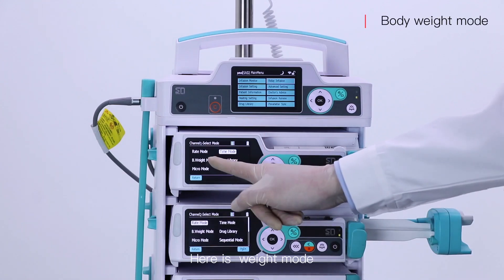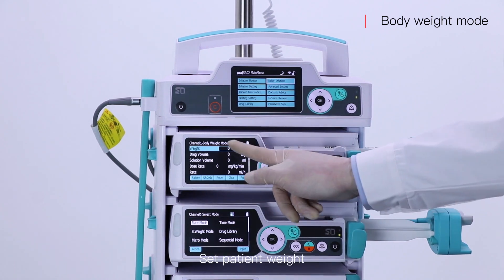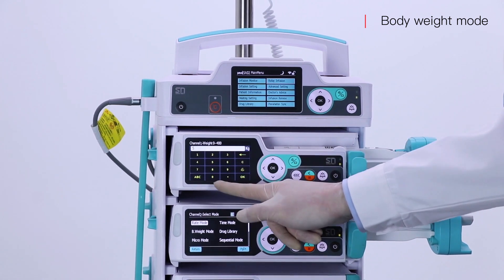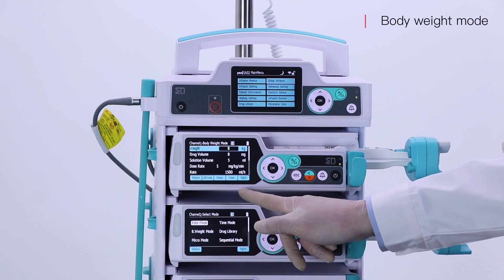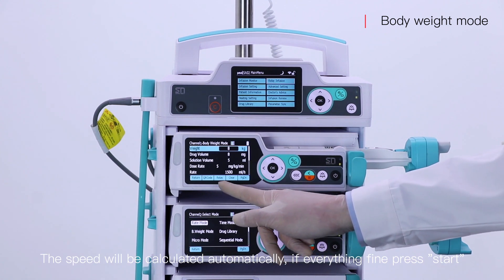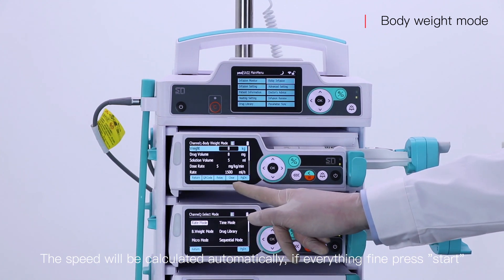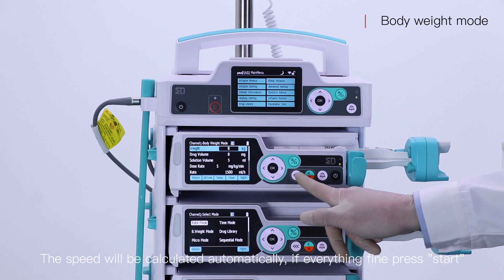Here is the weight mode. Set the patient weight. The speed will be calculated automatically. If everything is fine, press start.